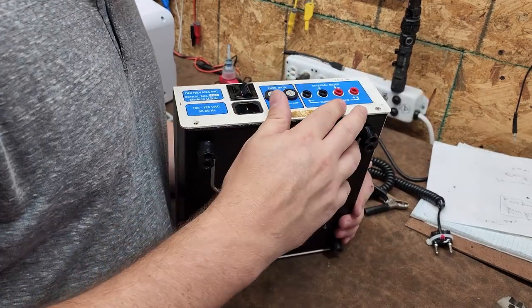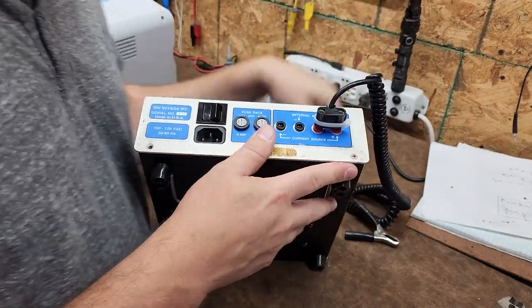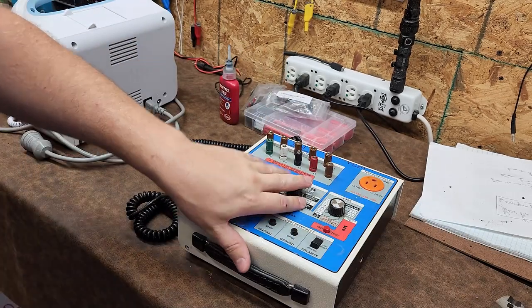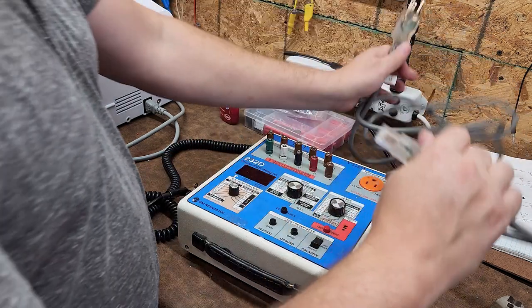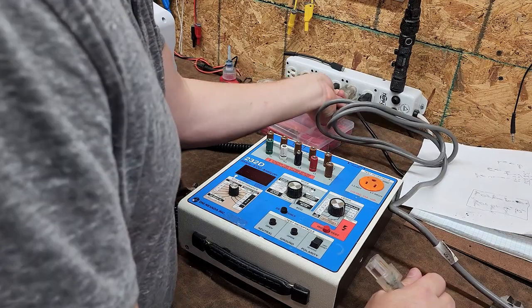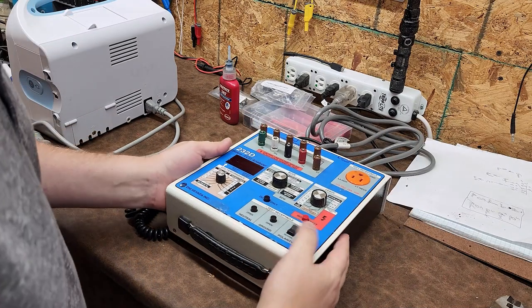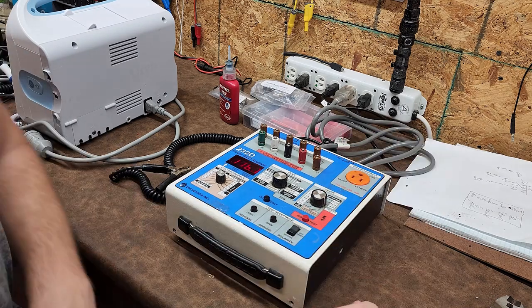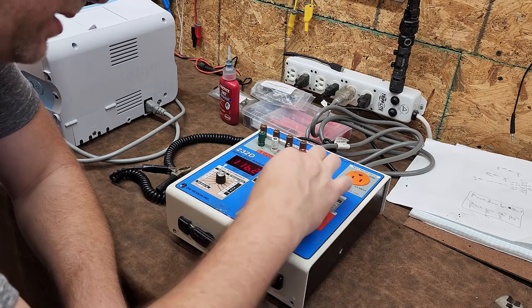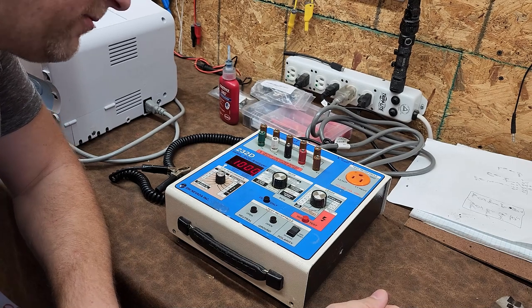I looked up the user manual: to do standard electrical safety, you plug the Kelvin cable into these two right here. I've got a nice, heavy-duty, medical-grade power cord. Let's see if it even powers up — plugged in, polarity is currently off. And immediately it does power up. I have 1000 on the current source active — I'll have to look that up and see if that's an auto test on internal load resistors.